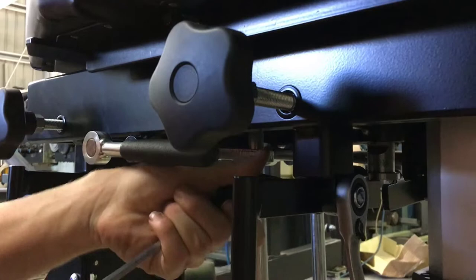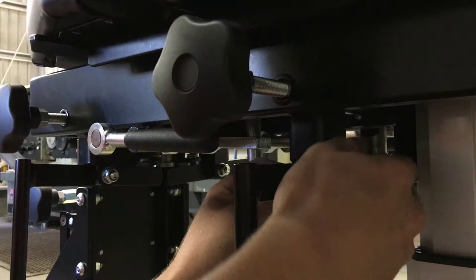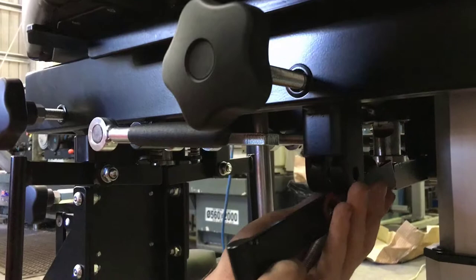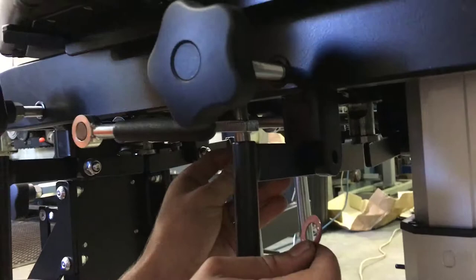Counter-twist them. Once you can't do any more by hand, make sure you hold onto the washers and nuts. Slide it back through and just slide the unit out — you'll see the washers on the unit as well. Then just swap your pedals out and reverse the process. We'll show you exactly the same steps in reverse to install it.